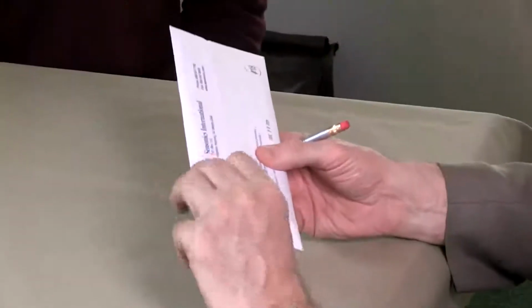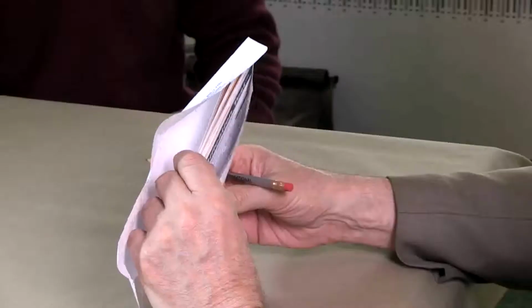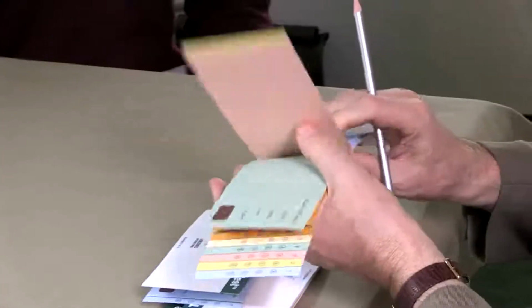The purpose of this video is to explain how we administer the smell identification test. This test is known in the literature as the University of Pennsylvania Smell Identification Test, but commercially it's known as the Smell Identification Test. Basically comprised of 4 booklets, each of which contains 10 scratch and sniff labels on separate pages. It's a very straightforward test.